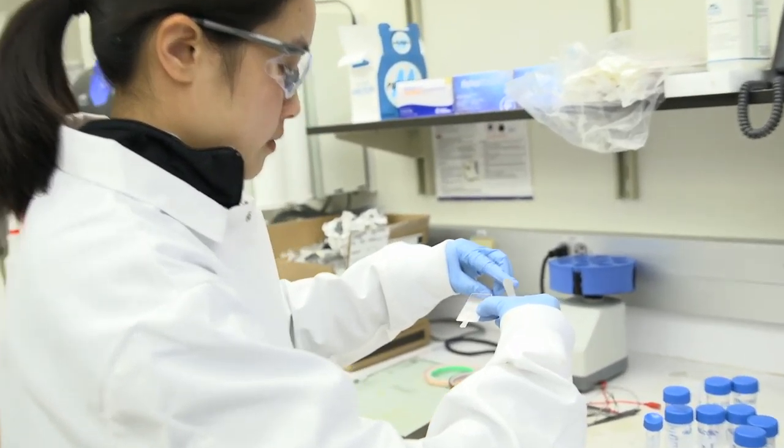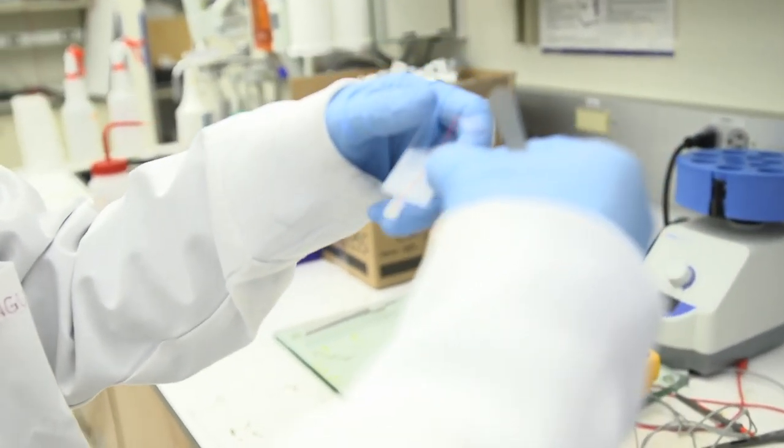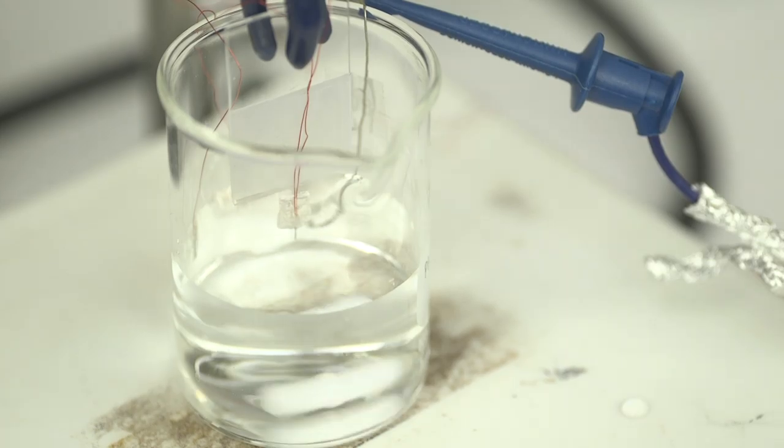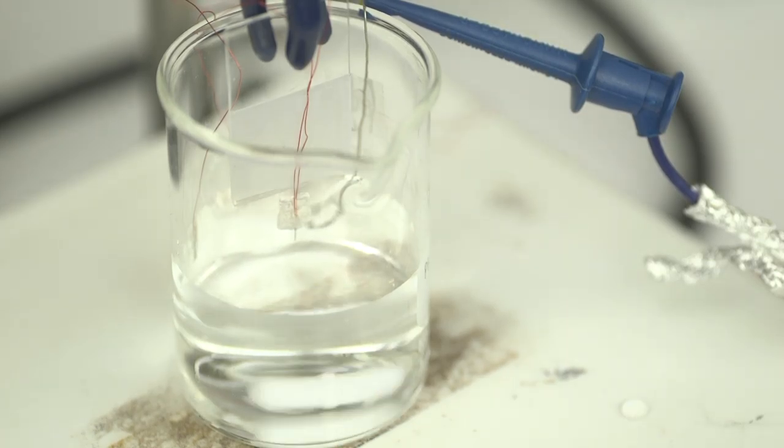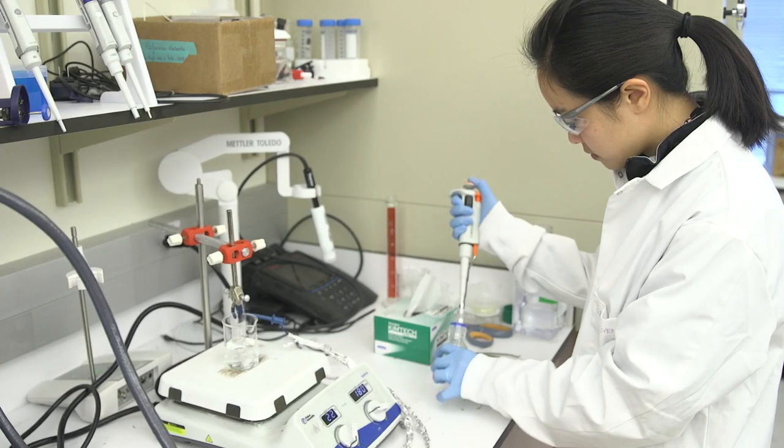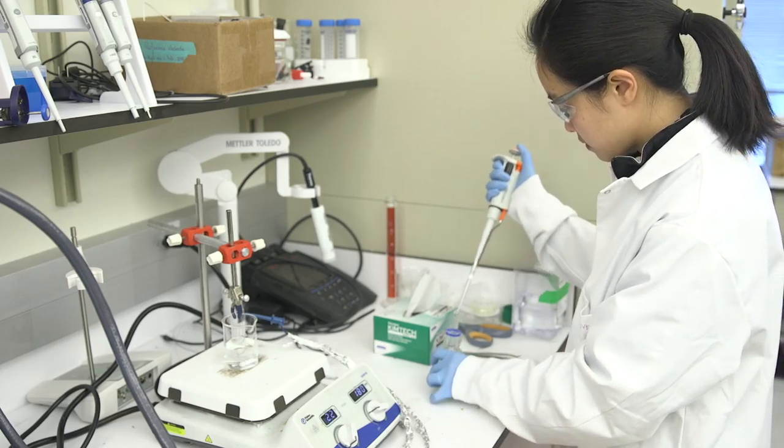When creating a biosensor, we calibrate the devices on the bench top. We test it in a beaker filled with PBS and spike it with known concentrations of the analyte of interest.